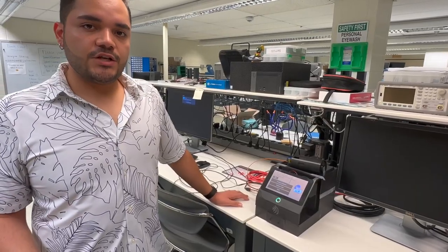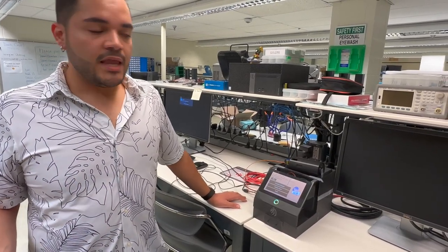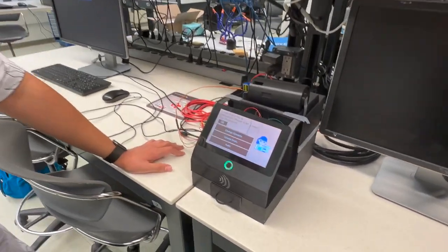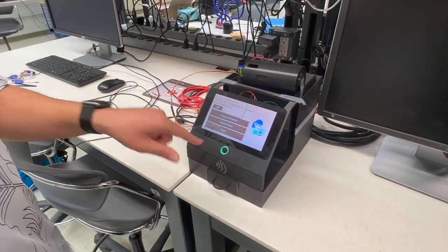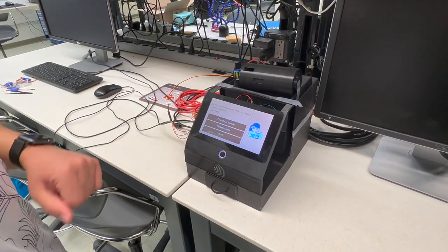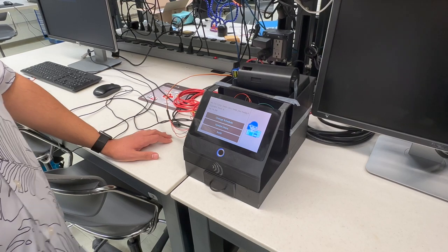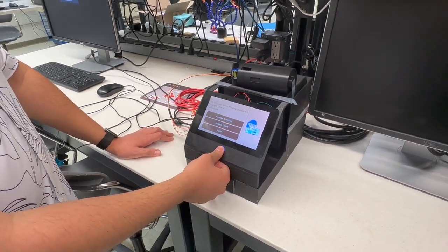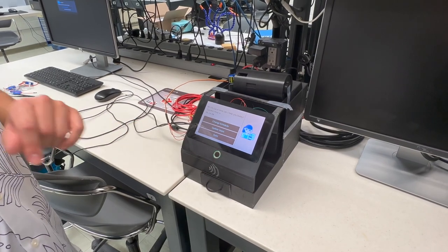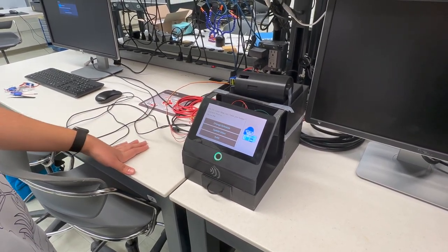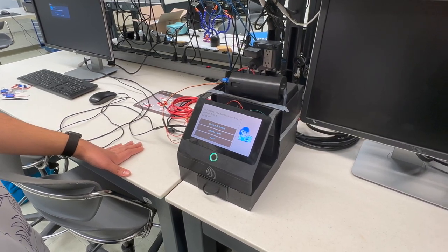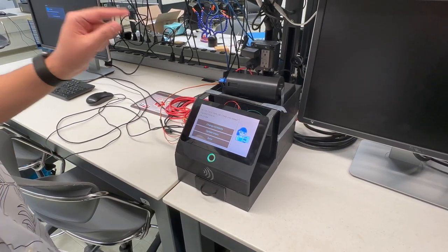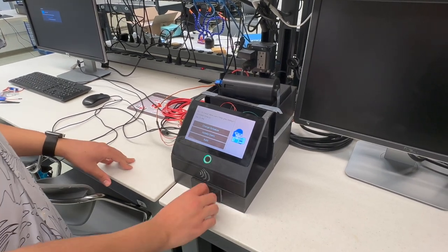I have a medication that I have to take from 3:30 to 4:30 in the afternoon, and the device is prompting me to scan my fingerprint. The fingerprint scanner has a green light around it, but once I click OK it'll turn blue to indicate that the scanner is ready. I place my thumb on it, and when the scanner is done scanning the light turns green. The device has now dispensed my medication. All I have to do is open this drawer and here's my pill.